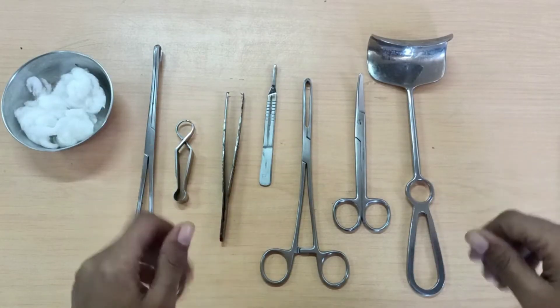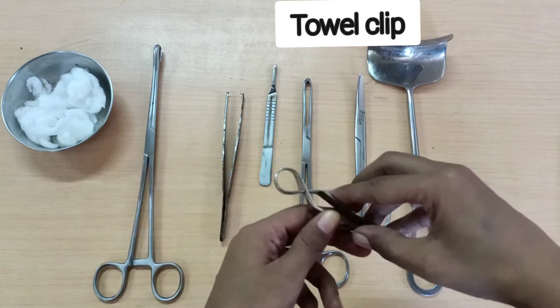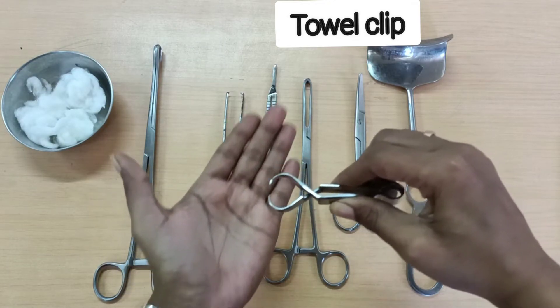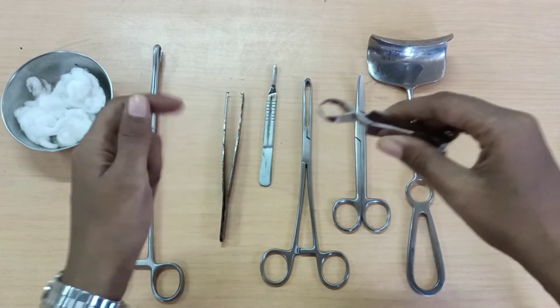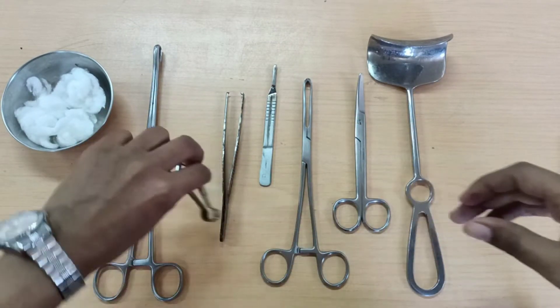Coming back to the caesarean section, next we are going to drape the patient, and to hold those drapes we are going to require towel clips. We require 3 or 4 towel clips just to hold the drapes in position.